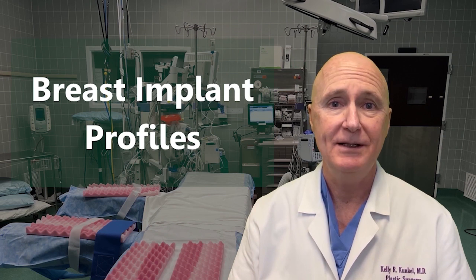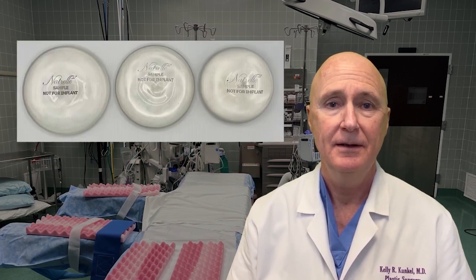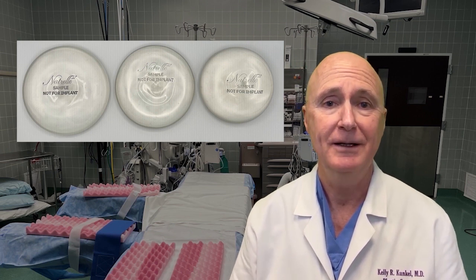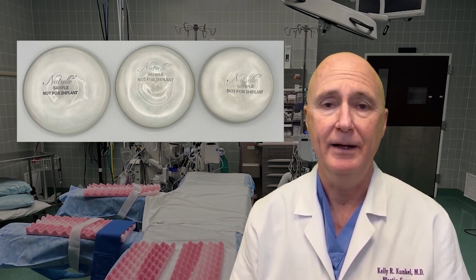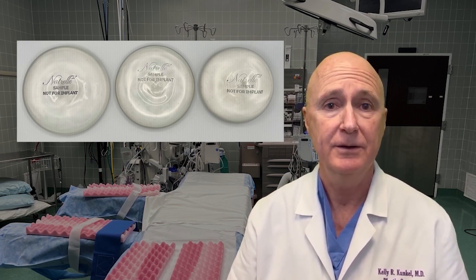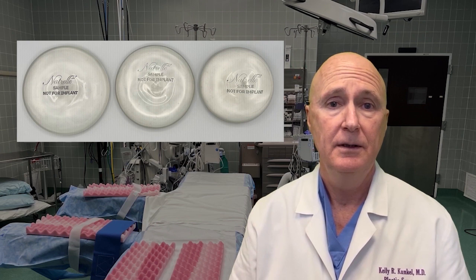Let's talk about breast implant profiles. These are all Allergan Natrelle sample breast implants. You can read right there, it says not for implant. They're all 400cc breast implants, and they represent some of the profiles that Allergan Natrelle offers.